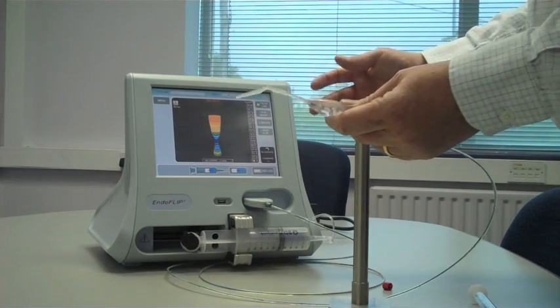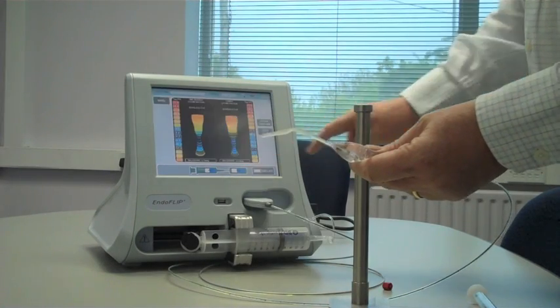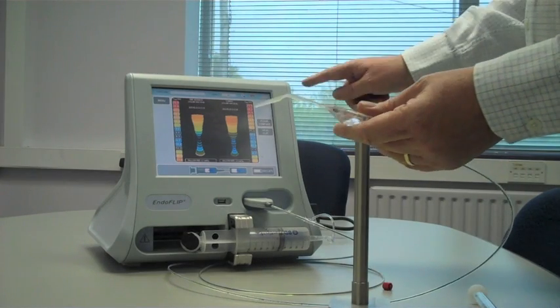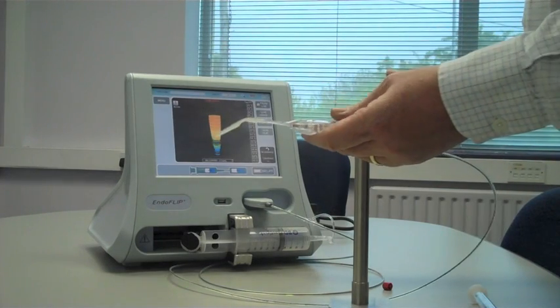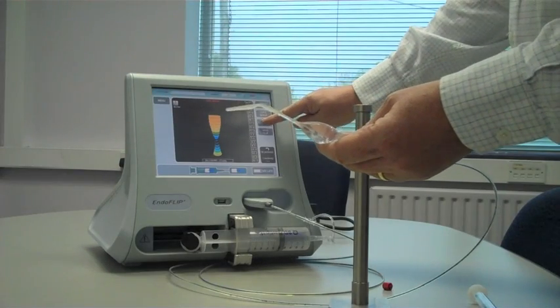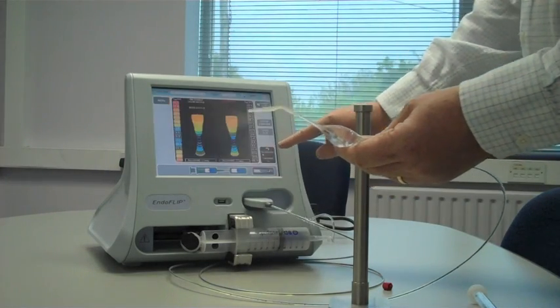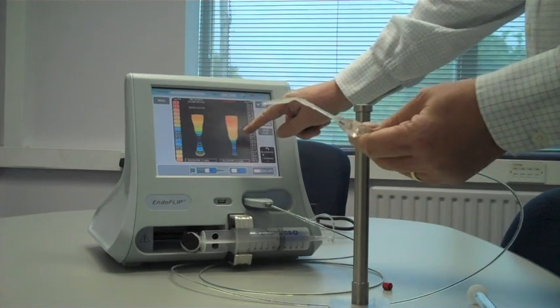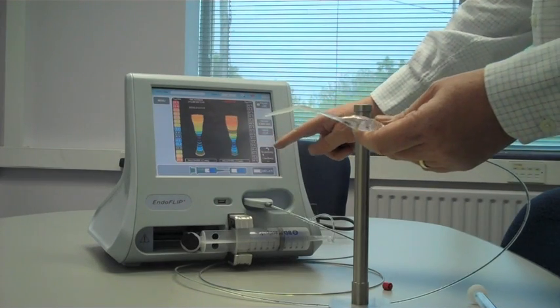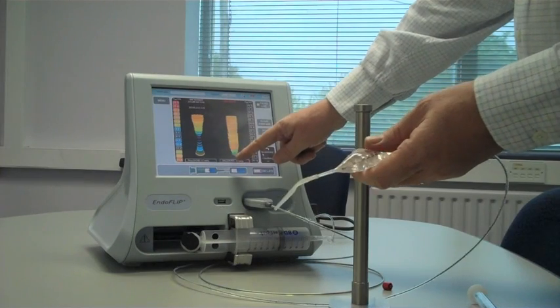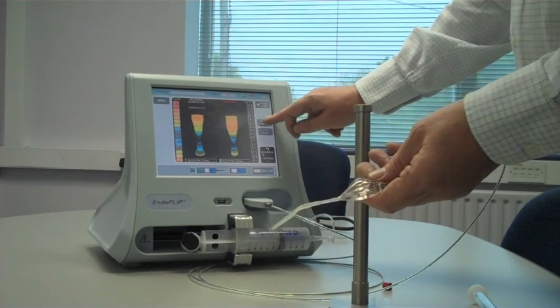If I want to go back and look at those, I can hit Compare, and there's my two images. I can hit OK. To go back to the live image, I can hit Clear Compare, and now I'm back to the live image in the balloon. Equally, I can compare a stored image by picking one image with the live image. So here's the live image and there's my stored image. And again, you can see the estimated diameters here and also you can see the balloon pressure here.